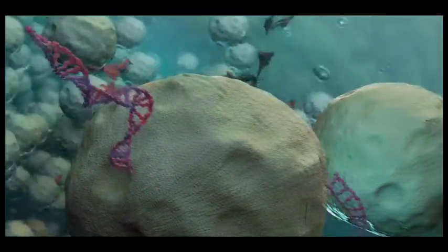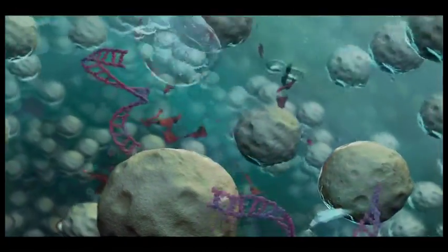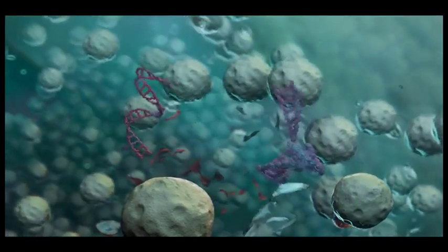Ceramic beads are agitated at high speed to break open cells and viruses and release the nucleic acids.